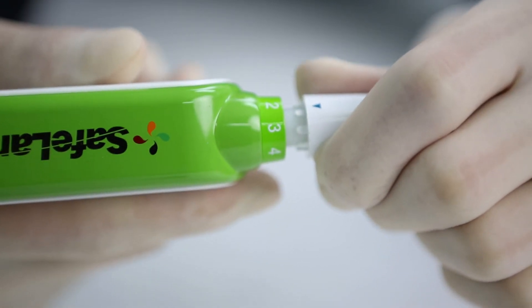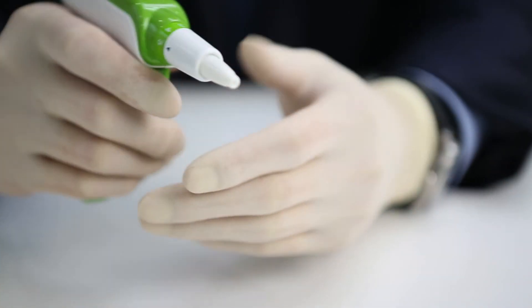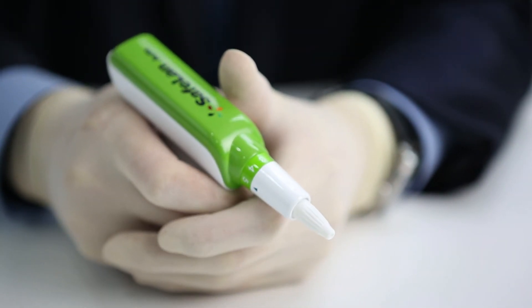So the needle never protrudes, except when being used, preventing needle stick injuries caused by careless use.